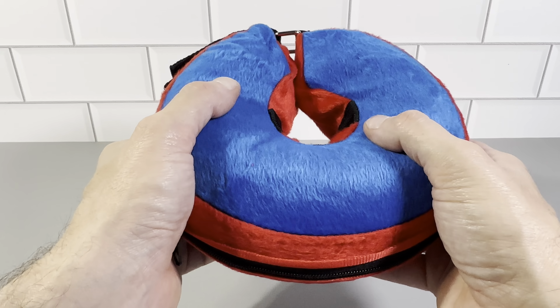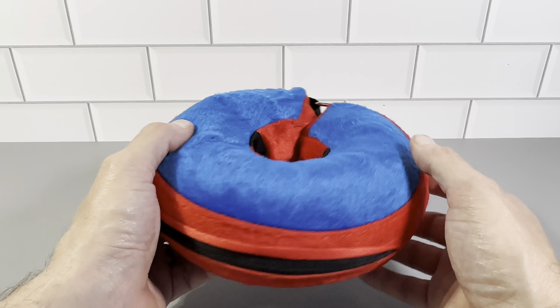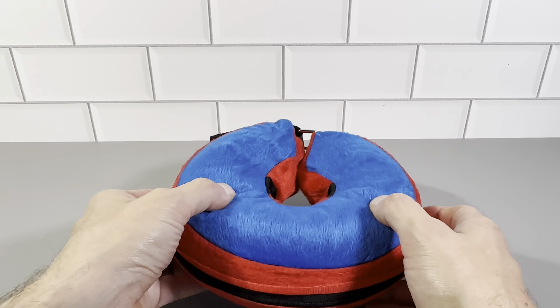This is a really nice dog collar if your dog is recovering from an injury, a surgery, or something like that. It's nice because if they're laying down, they can rest their neck on it and it's comfortable for them. Unlike some of the other ones out there, they can definitely use it as a pillow as well.